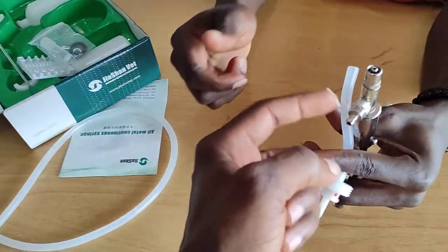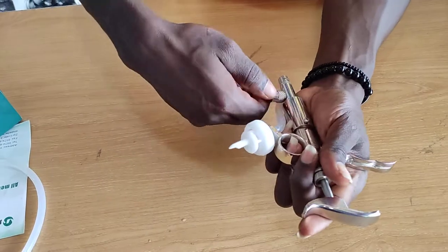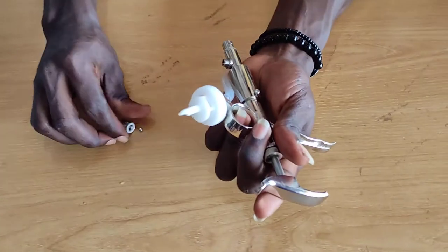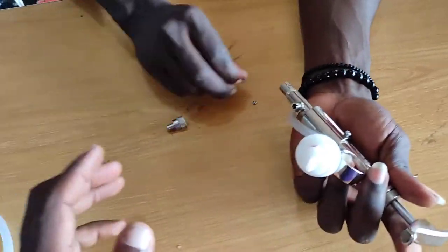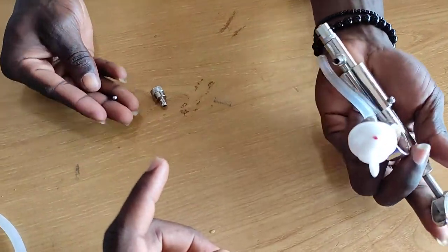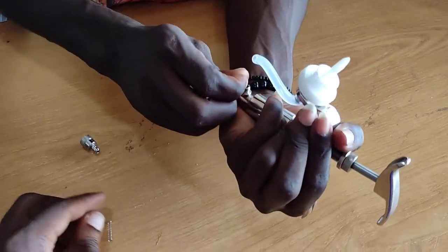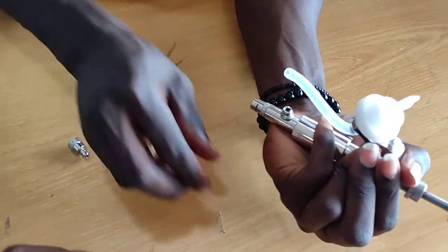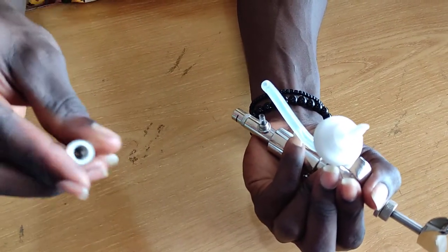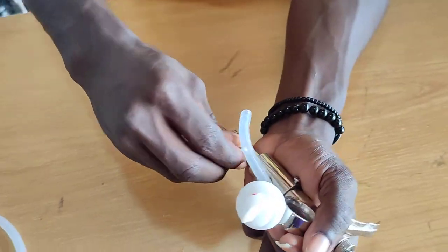It's the same arrangement over here. Open this side too and let's see — the spring came out. So what goes in first? The ball goes in first, then the spring. It also has a seal, so the seal goes in too, and then the whole cover goes on.